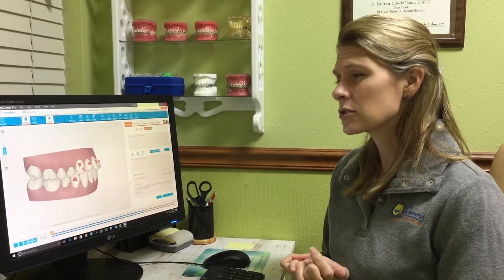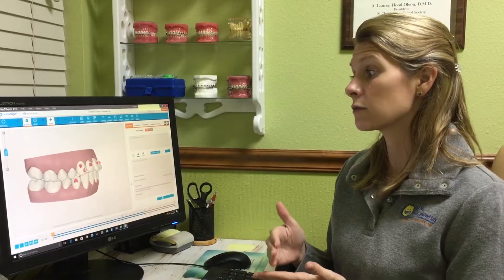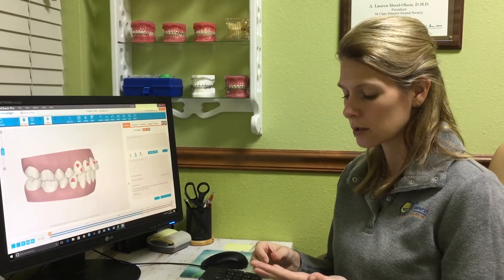That's why it's extremely important to have somebody that is very knowledgeable in not only how Invisalign works and how to correct common problems with Invisalign, but also the simple fact of understanding the occlusion, how teeth are going to move, and what movements you need to do to actually get the result that you want.